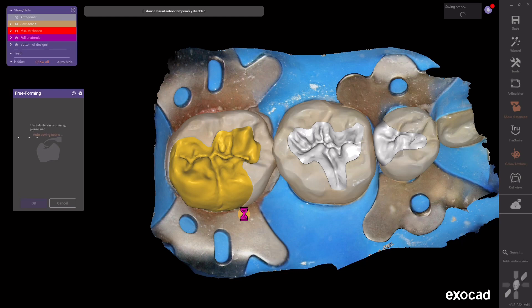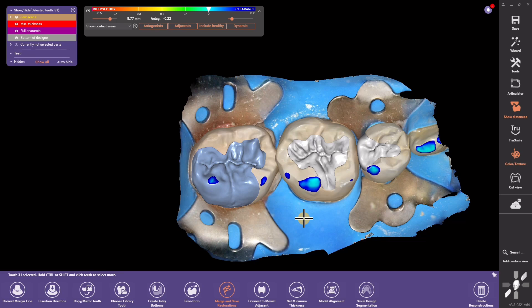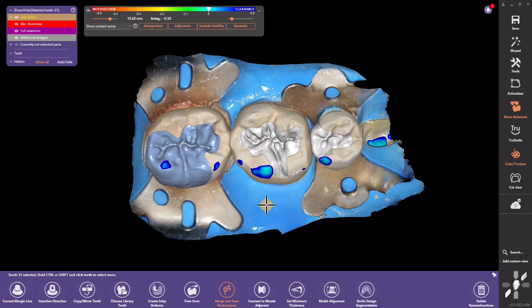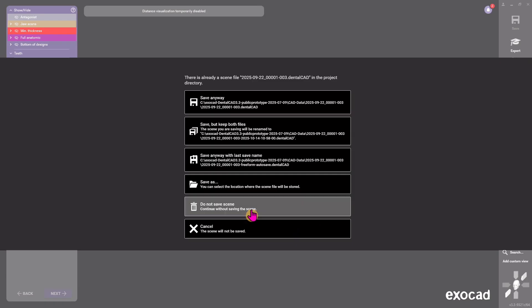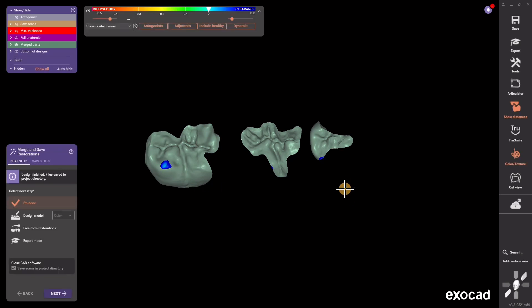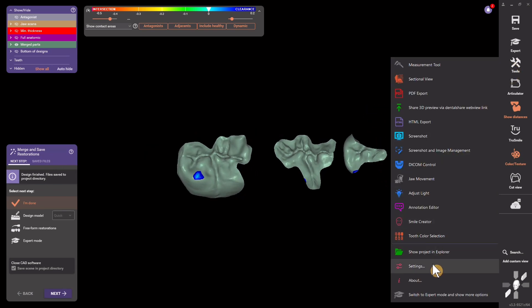Use Add/Remove and it takes about three seconds. After you do all these edits in Expert Mode, you can merge and save in Expert Mode, or just pop back to the wizard and the software will make sure you get that final part. You can hit Merge and Save — that's the orange circle at the bottom with the race flag — or go back to wizard and it will automatically merge and save with all your changes. It will update the construction.info file for your milling or printing.